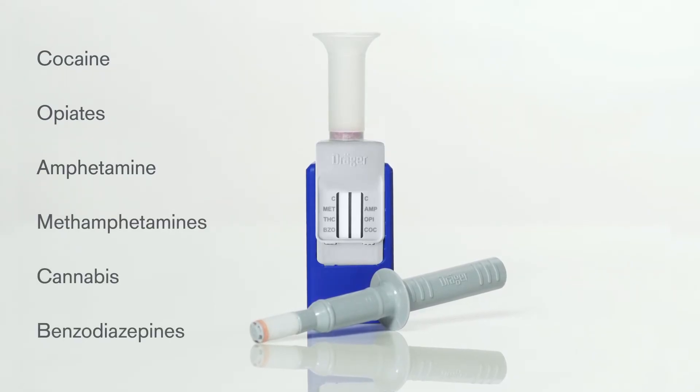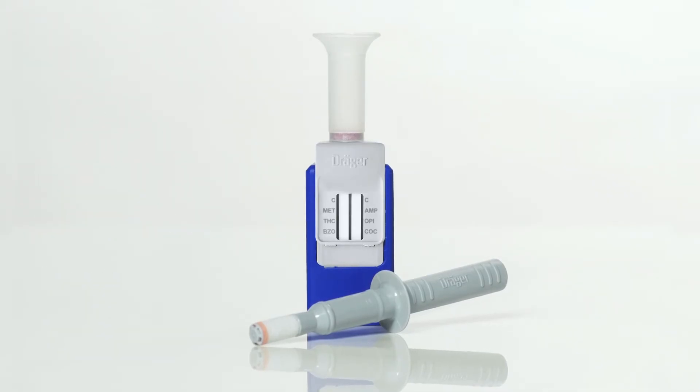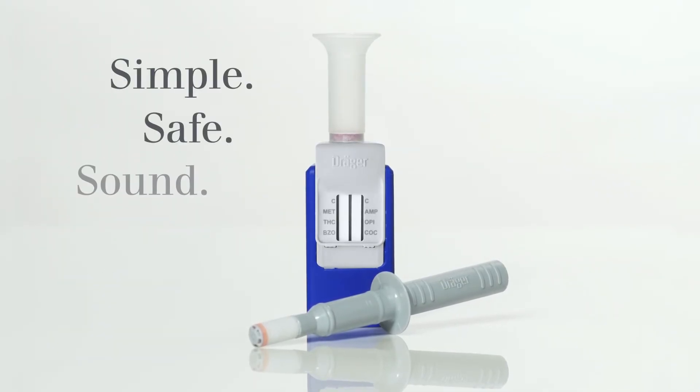You can prove the presence of these substances on the spot and within a very short space of time. Simple, safe, sound. And you don't need a power source to do it.